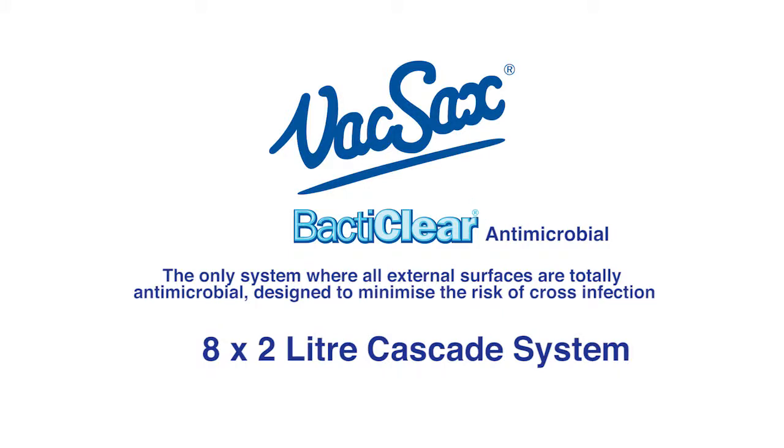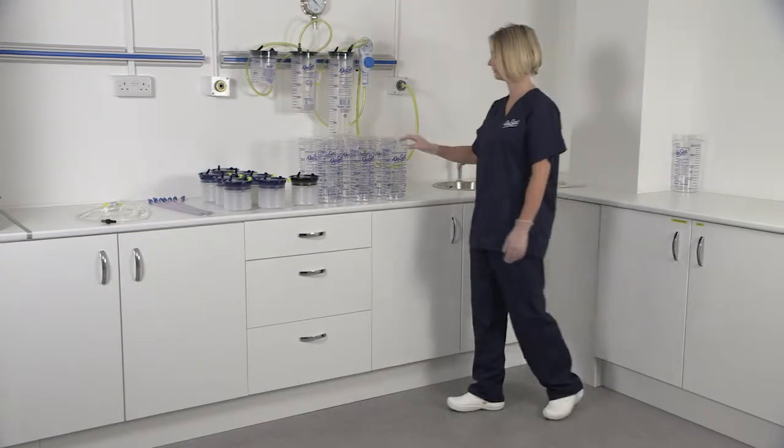The eight by two litre cascade system. For this you will need eight two litre cascade canisters.